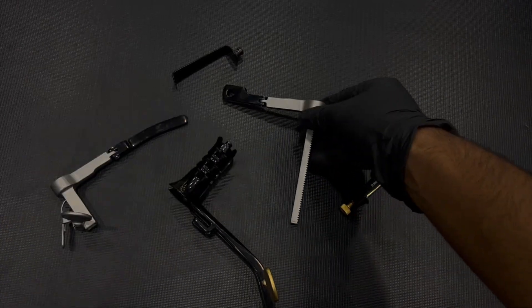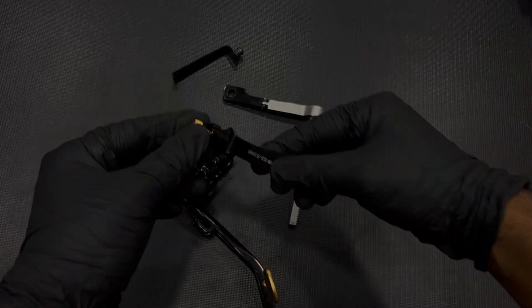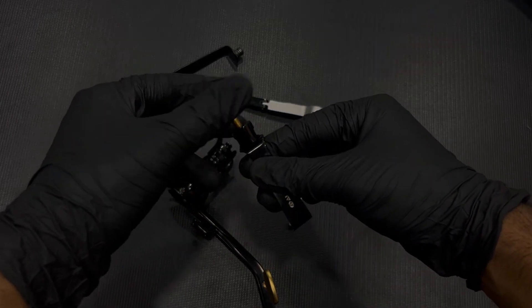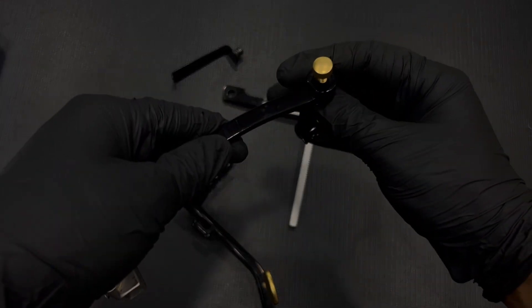The ergonomic design provides comfort and control, making every movement precise, while the fenestrated and toothed blades offer unmatched stability, securely maintaining their position to minimize tissue trauma.